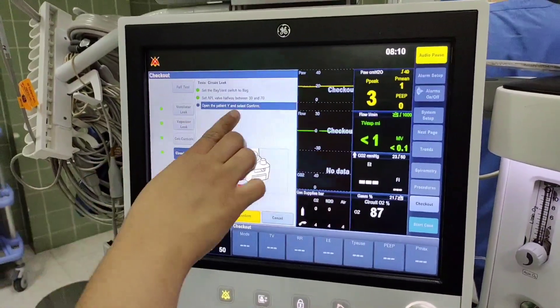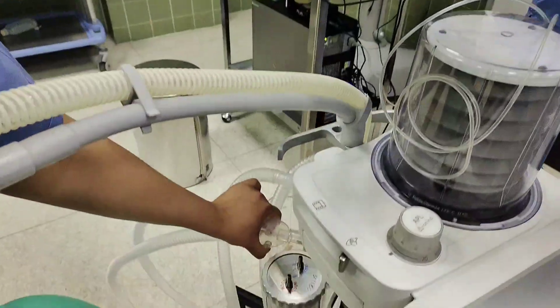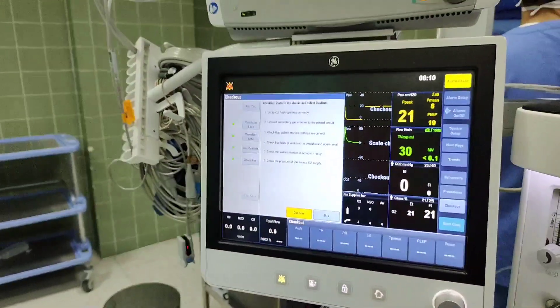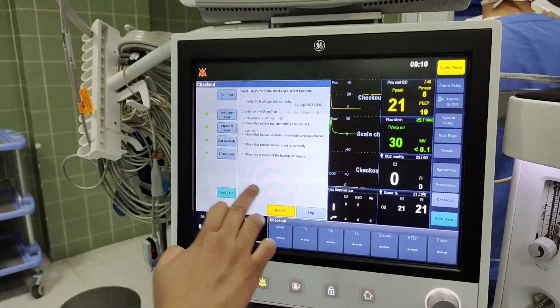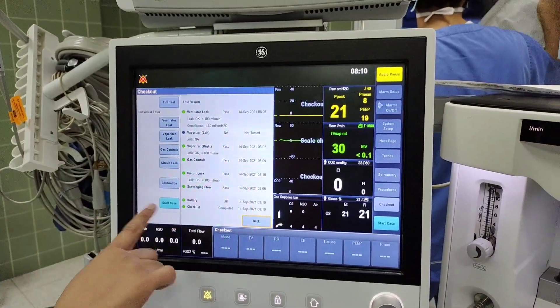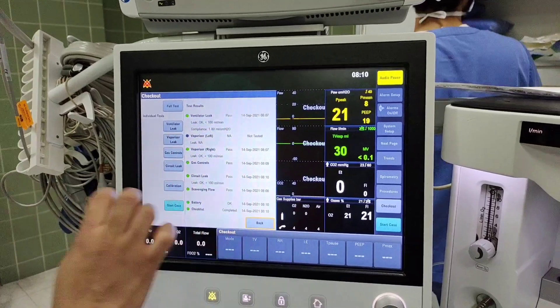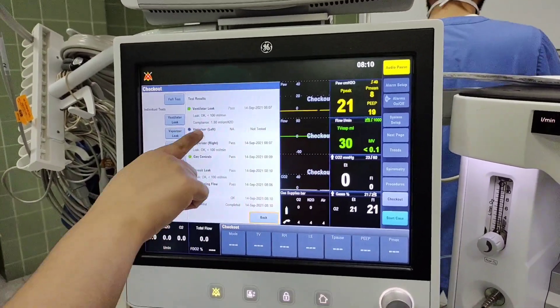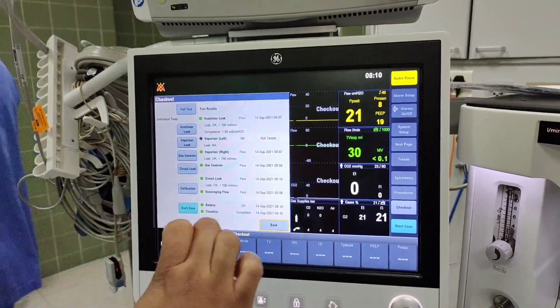It is coming here, open Y, open Y and confirm, confirm. You see, this is coming back, finishing, because we check everything. Only we don't have vaporizer left, that's why it is coming like that. All green should be here.